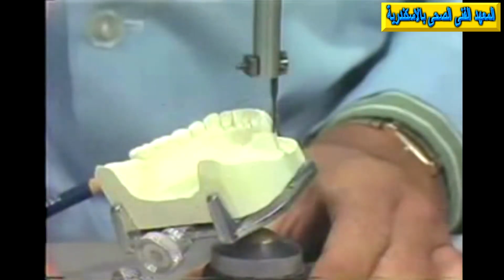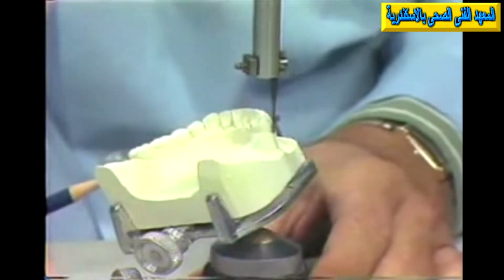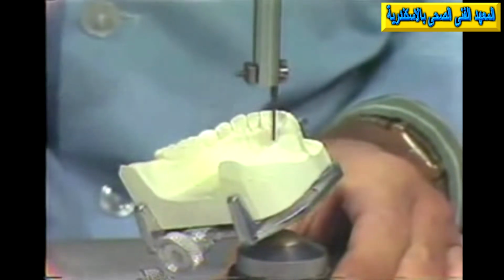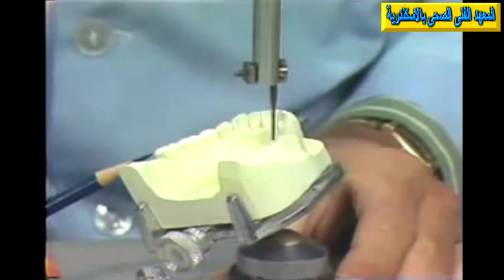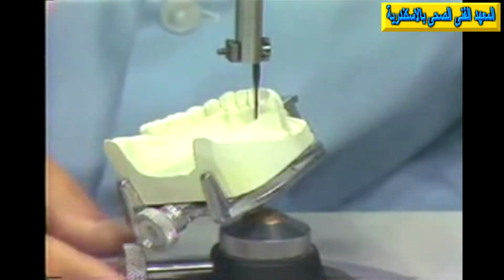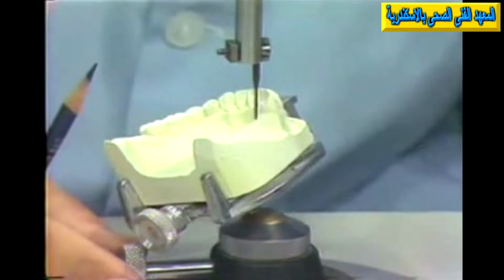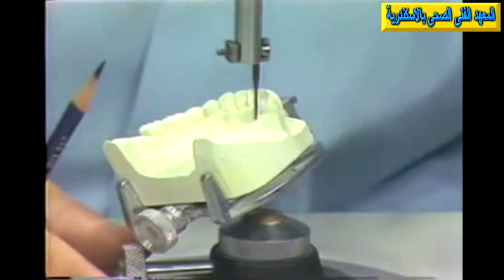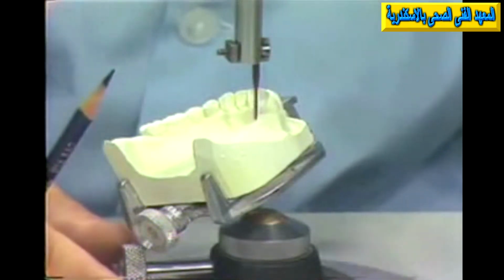There is no undercut we could utilize, and we could not use this tooth in this manner without some kind of radical change. The problem on the other side, we mentioned we had a tapered surface on the reciprocal side. Notice now that this area is undercut. The height of contour is right at the occlusal surface. It would not be possible for us to place a reciprocal arm in this area without getting it into an undercut. And we would like to have our reciprocal surface above an undercut, and we would like to have it preferably on a flat plane so that it could continue to engage the tooth as the direct retainer, that is the unit of the occlusal rest on the retentive arm and the reciprocal arm is guided to place.